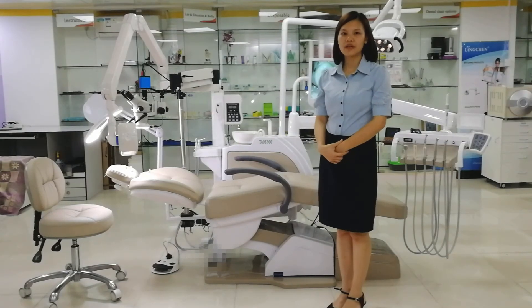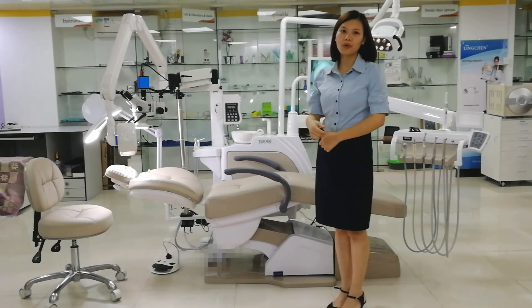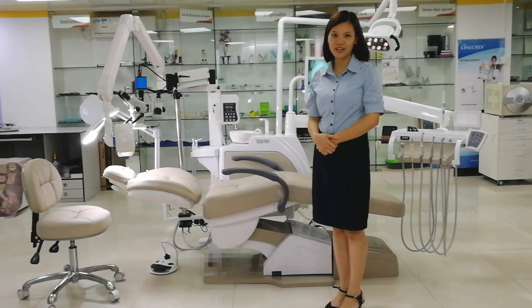Now I have finished sharing this Essential Clinic Unit, the Taos 900. We have 2 models of the Essential Clinic Unit — the other one is the Taos 1800, with the same options. Thank you.